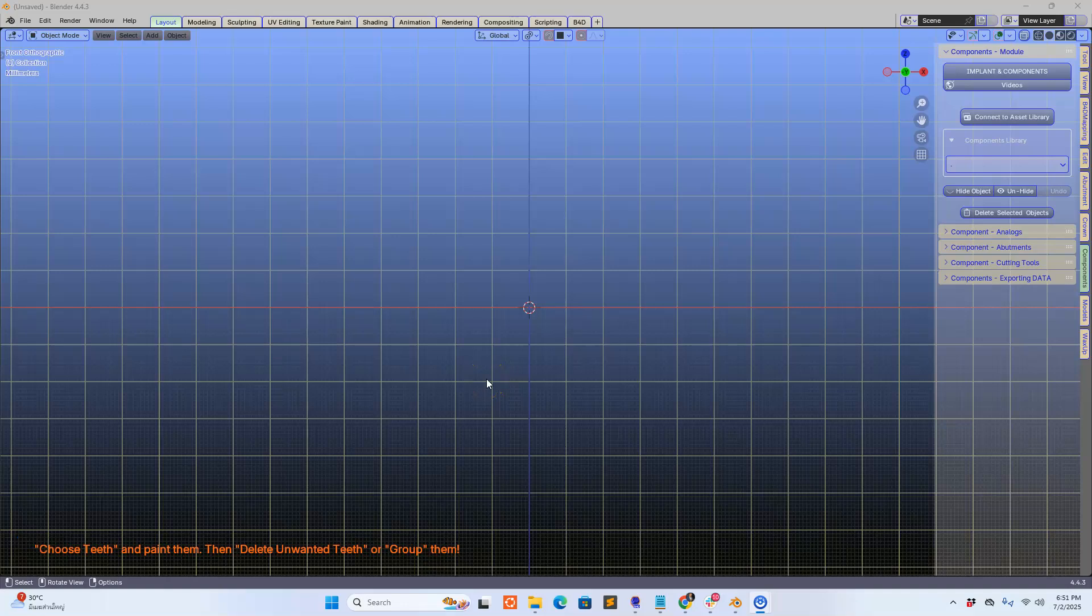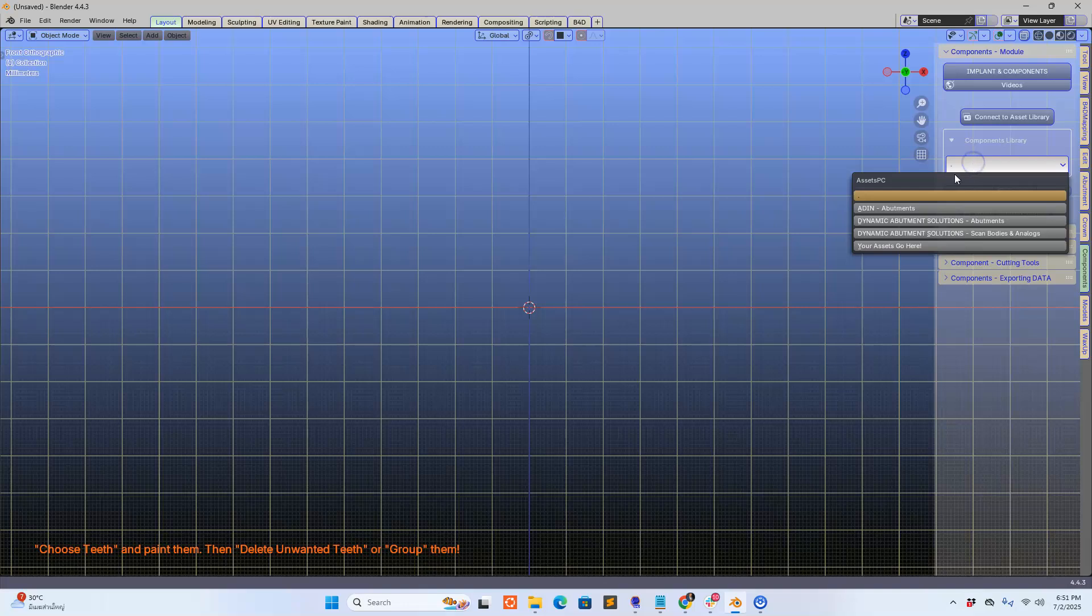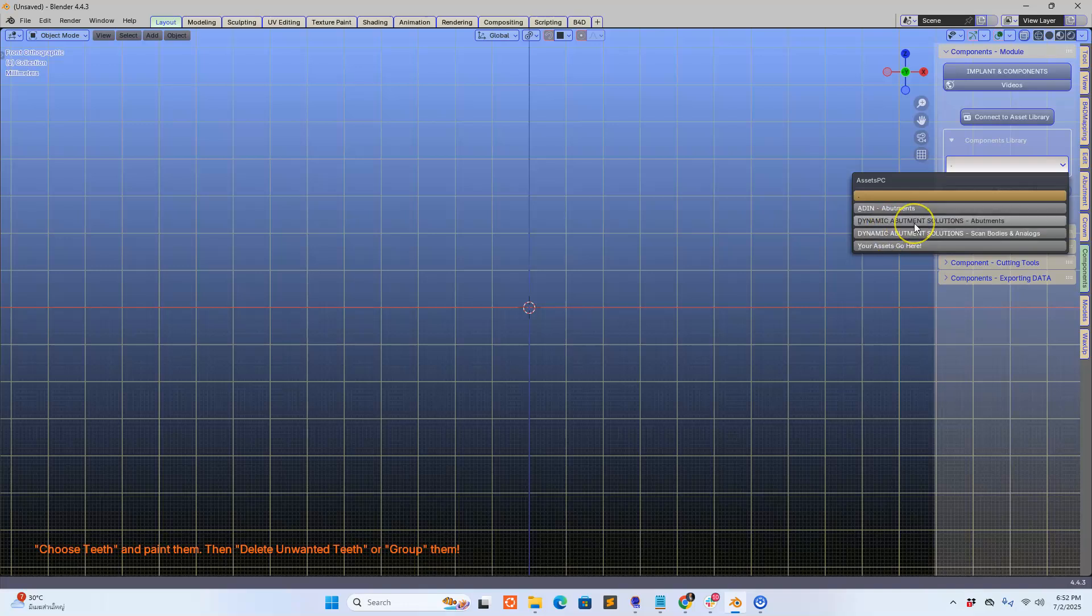Hey guys, in the next few videos I'm going to be putting B4D under a little bit of pressure. This is for the 4.4 version. So if you've got some time just hang around and watch because it's actually quite interesting and you'll see the power of B4D.